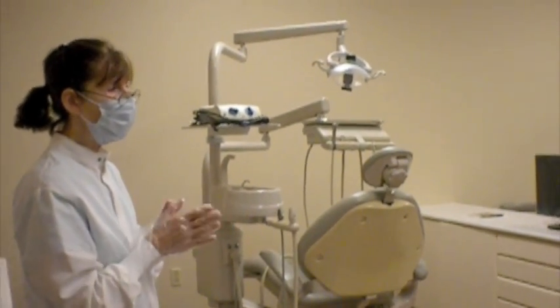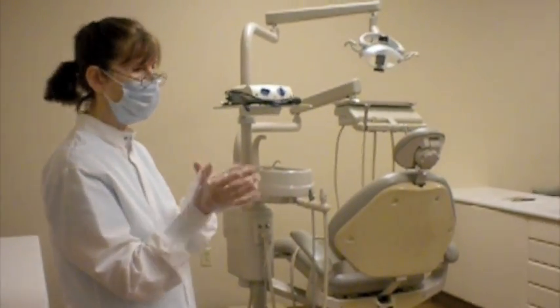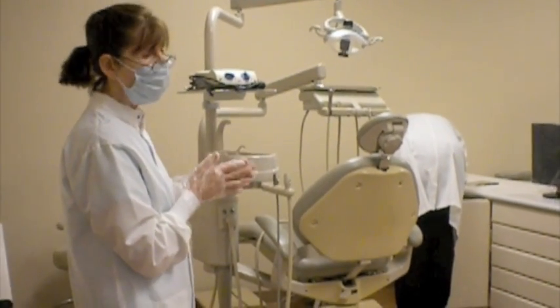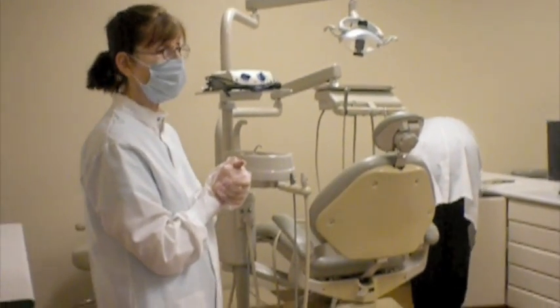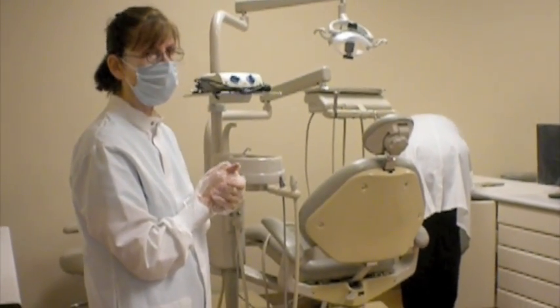So in anything that you do at the beginning of your day, you should always perform either a unit inventory, an operatory inventory, wherever it is that you're working. So now he's putting on his clean overgloves, and at this point in time, he's going to now put the supplies away. In this case, it's the extra box of overgloves. Questions on that at all?